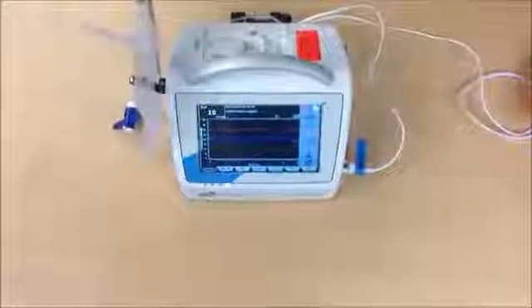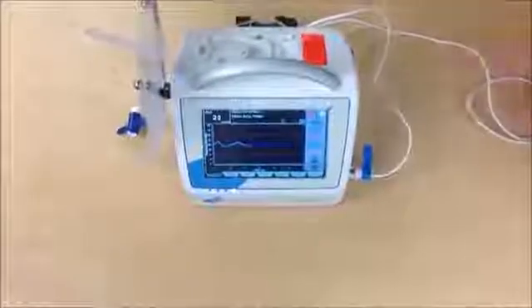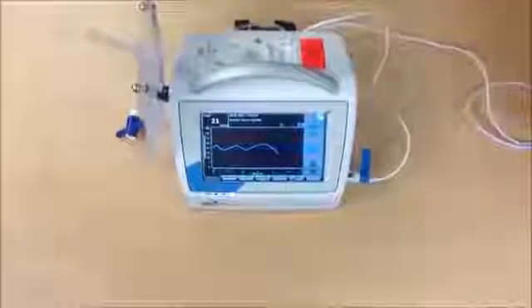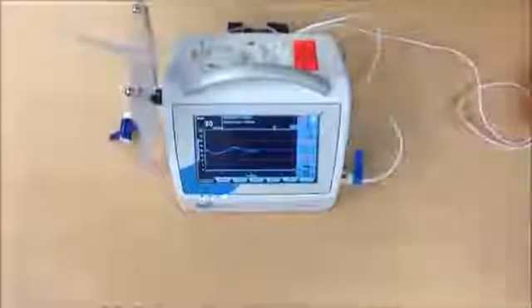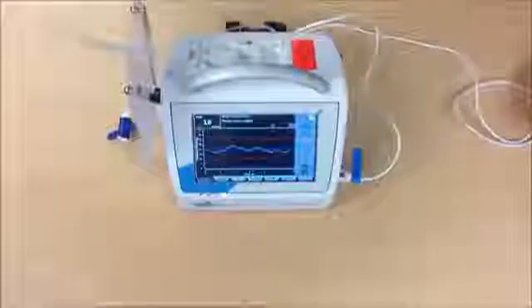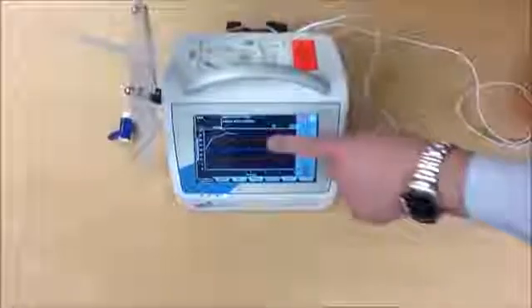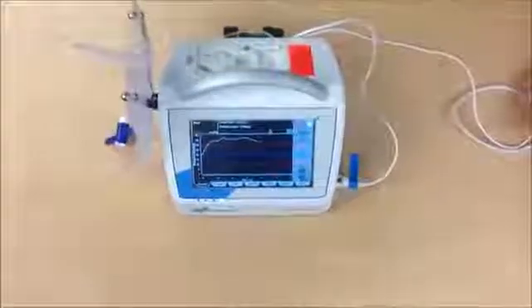We see the same situation again, but this time we see the rotation speed of the pump. Now again, the pressure is normal. Now we start the bleeding. Pressure goes high, goes above the red line and the alarm will sound in a few seconds.